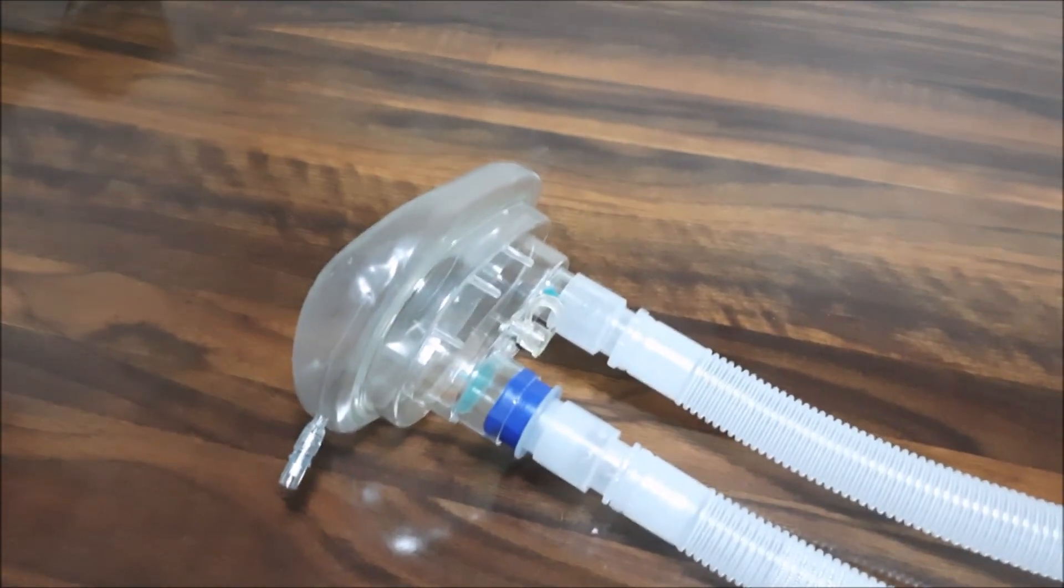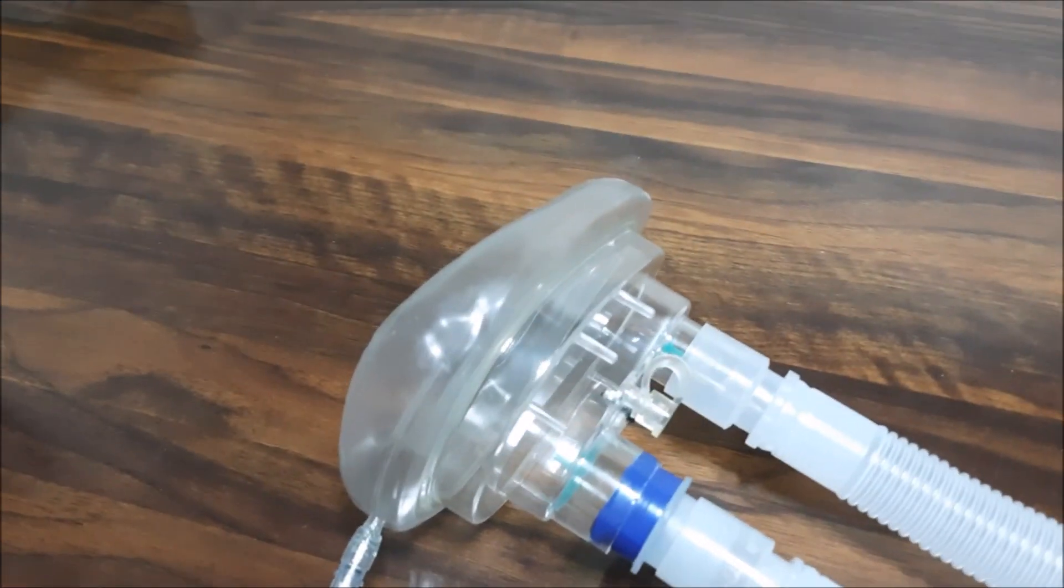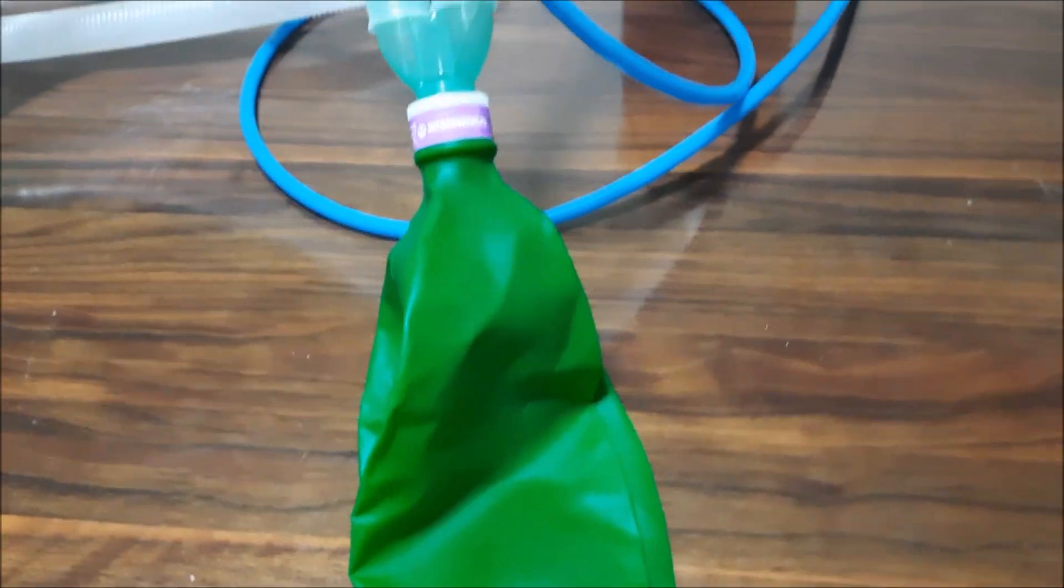There is a BiPAP mask with inlet and outlet valve. There are two airbags for buffer which are in series.